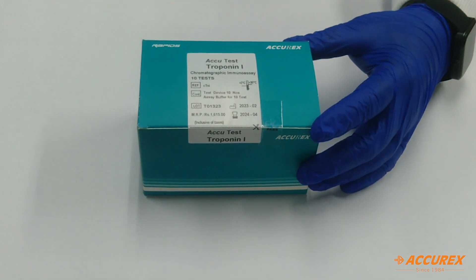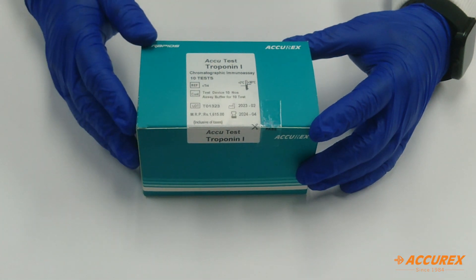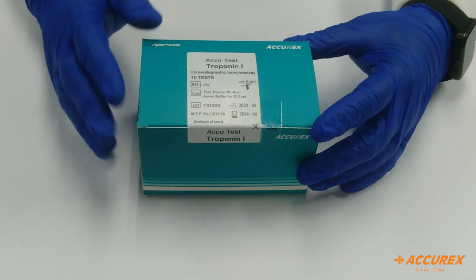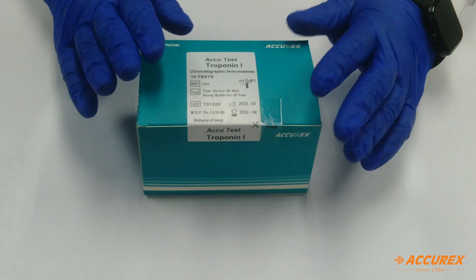For storage, you need to store the kit at proper temperature, that is 2 to 30 degrees. Do not freeze the kit and do not use the kit after expiration.